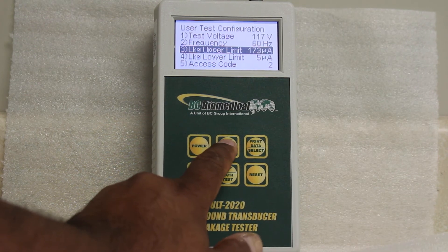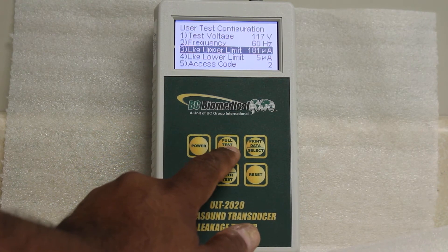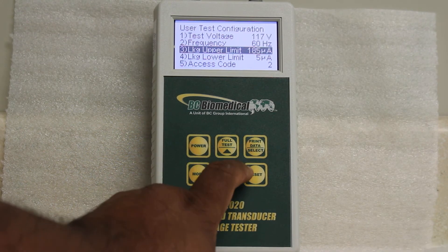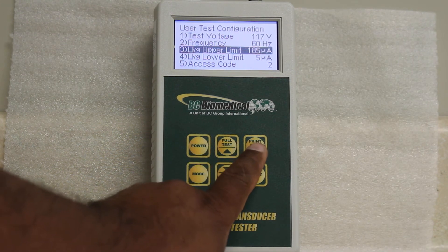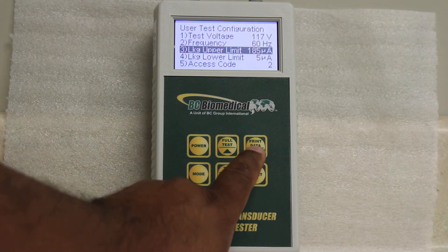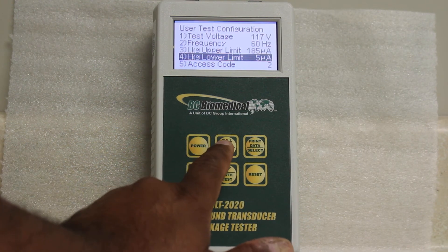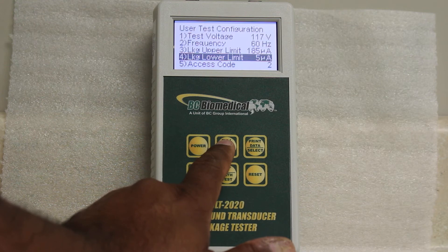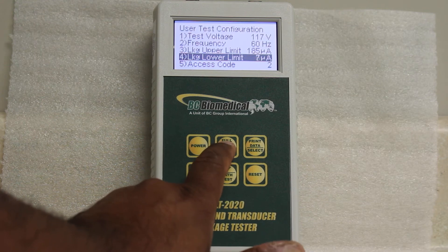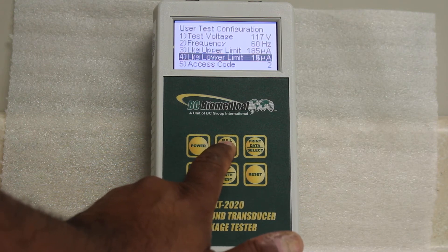You keep pressing the up arrow until you get to 185, and then you press the print data or select button again to go to the next one. Then you can change the lower leakage limit from 5 to 20 microamperes.